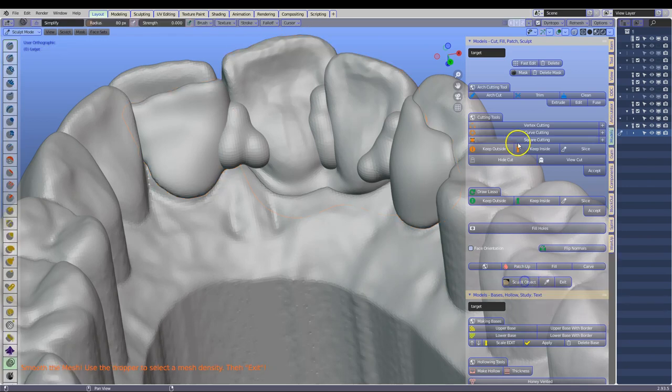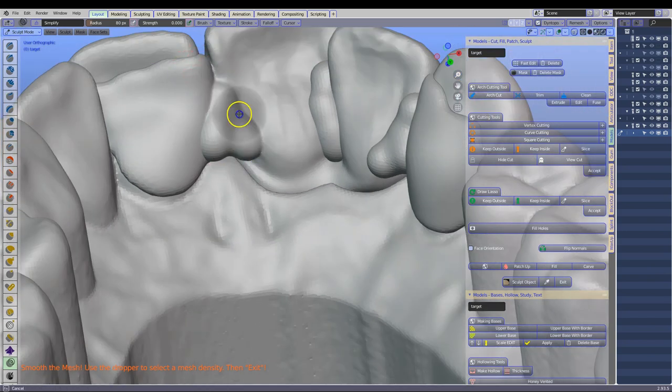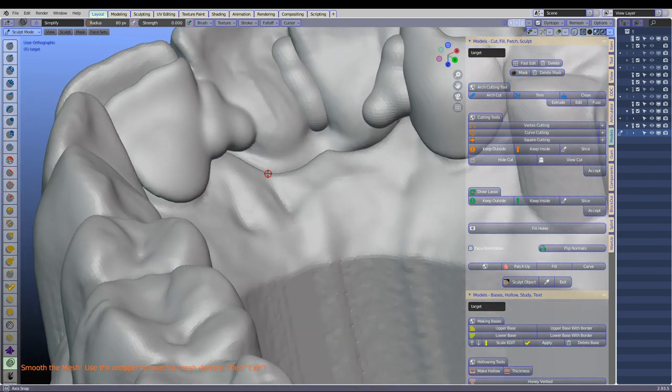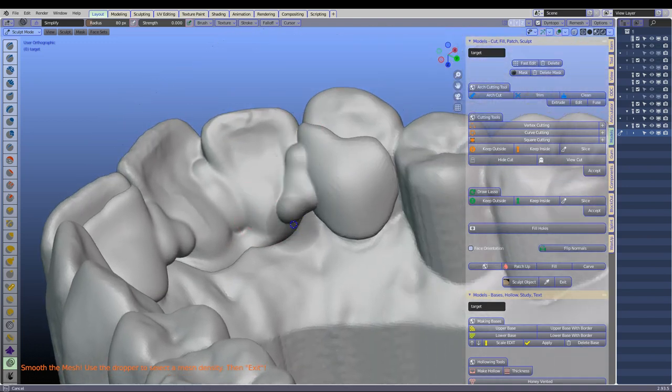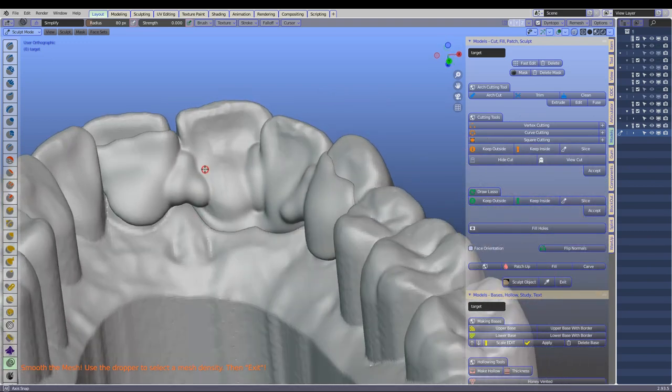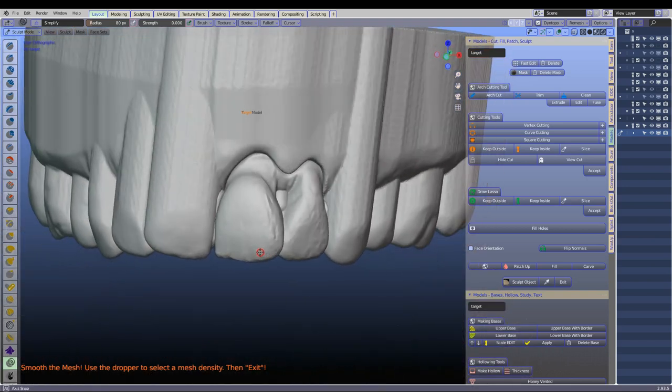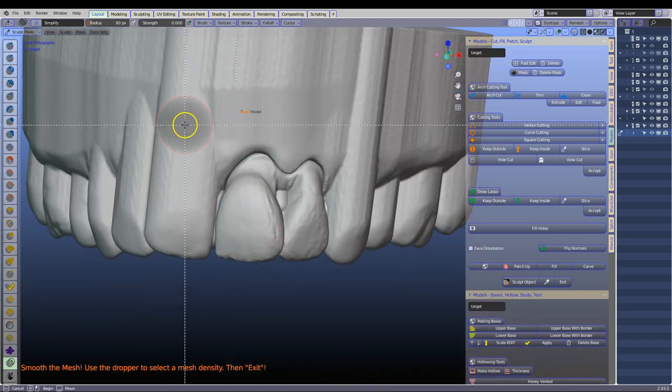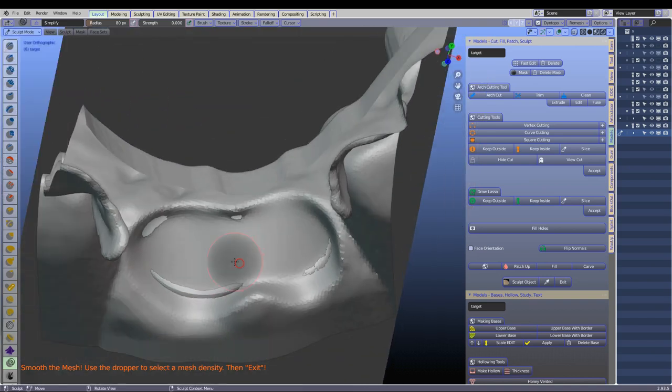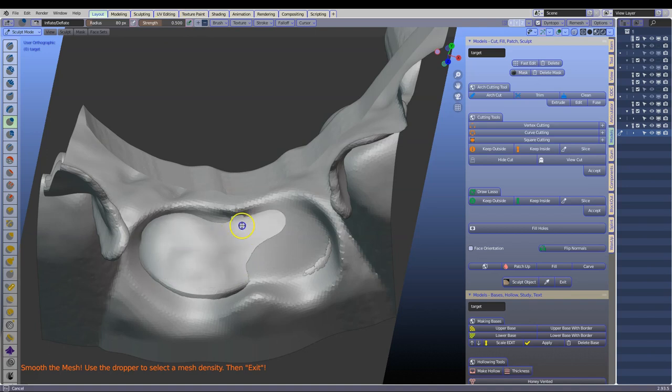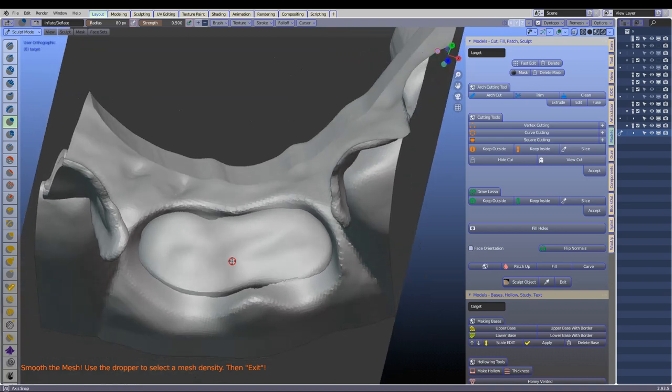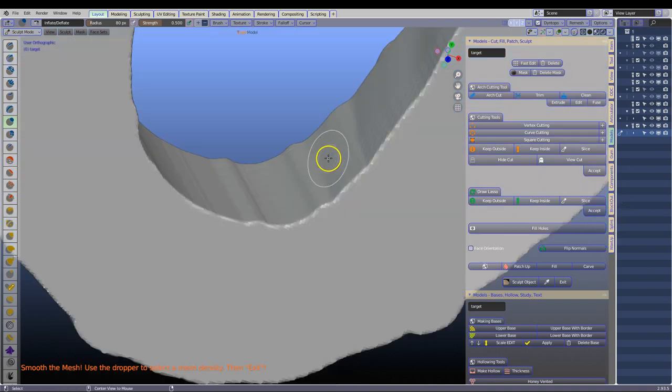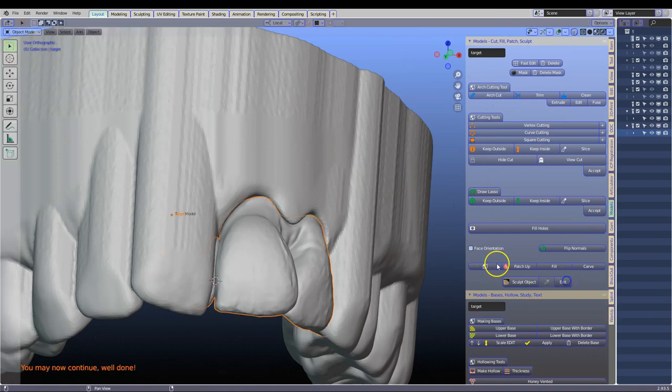Go to the Sculpt tool. And again I am going to go to the Dynotopo to make it quite fine. And we are going to then give it a quick smooth down like that. And lastly I want to have a look at the tissue fit as well to see how this fits to the tissue. So put it in the correct direction. Alt B. Look at it from the inside. So I am going to bring that out a bit. Go to inflate plus. I am going to inflate that up. Something like that. Because once I cut the tissue out of it we will then have a good tissue fit. Alt B to get out of that. And exit this sculpting tool.